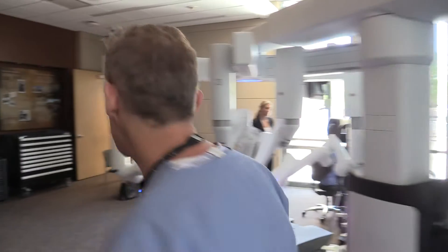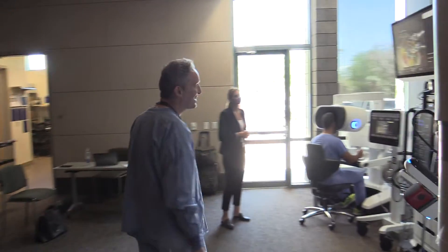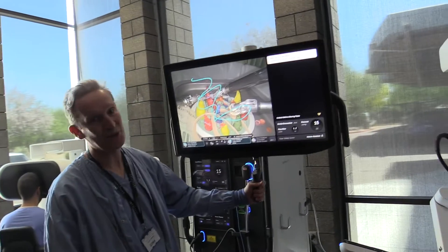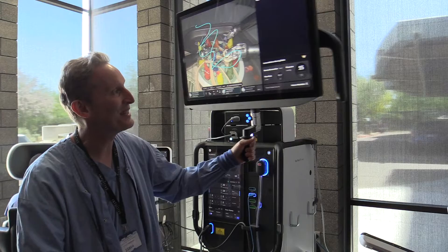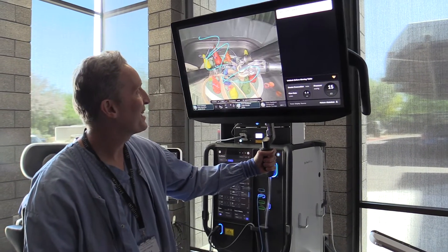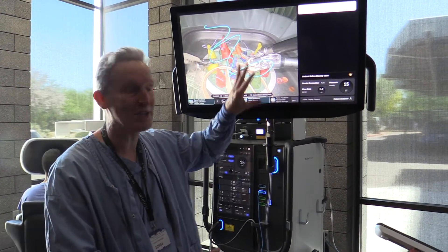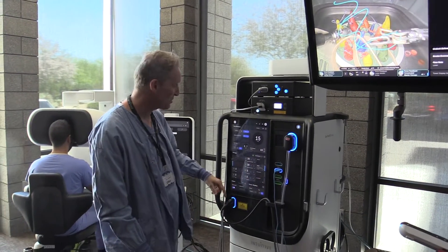Let's come round and see more of the changes. Look at this. This clutch controls — it's like another whole robotic arm. On the screen, this is now in the patient field, so you don't touch this because it's on the patient cart. Here's all your controls.